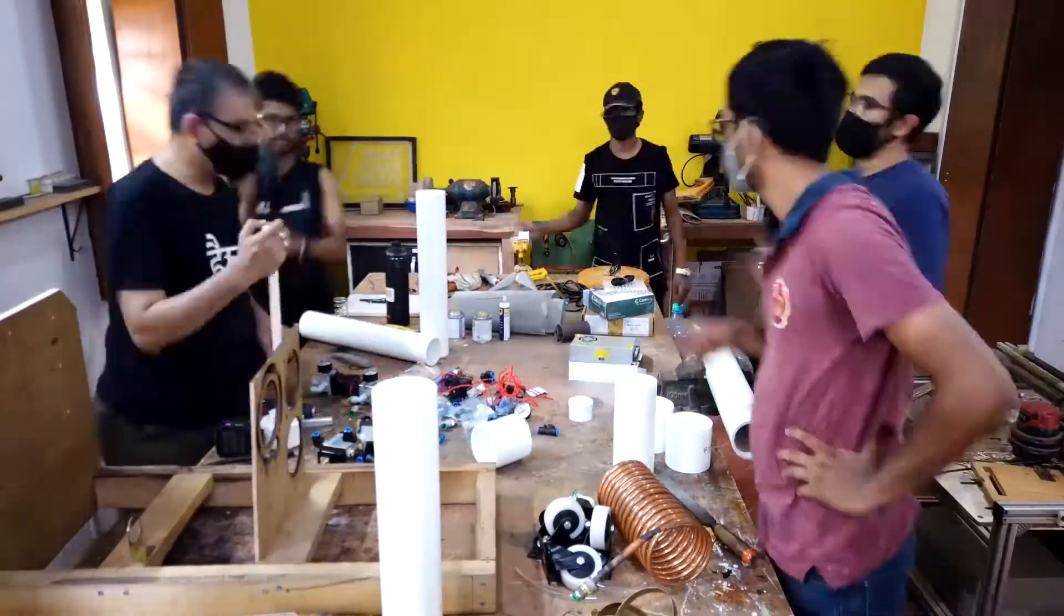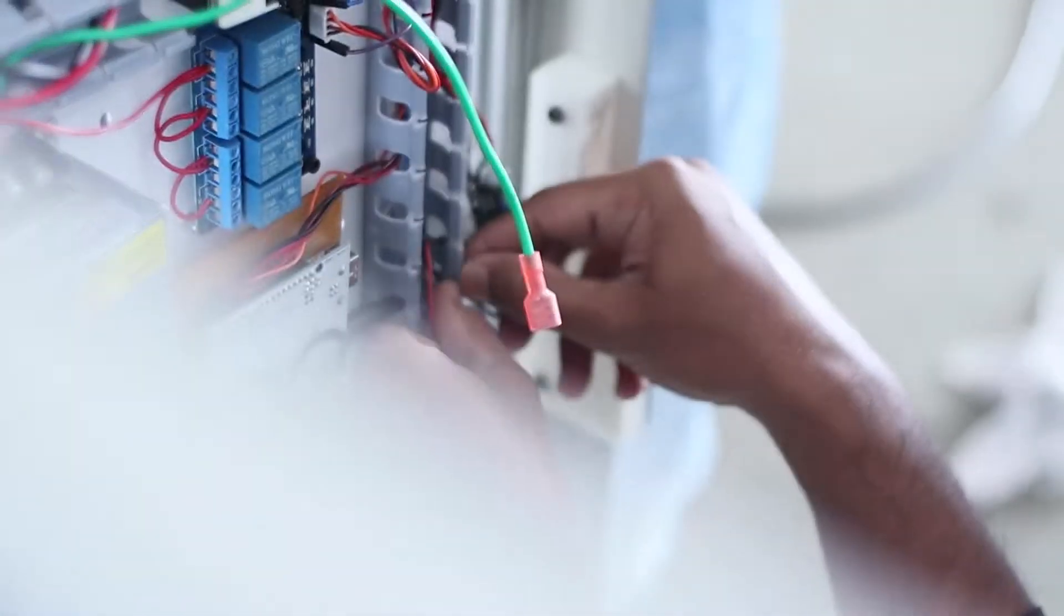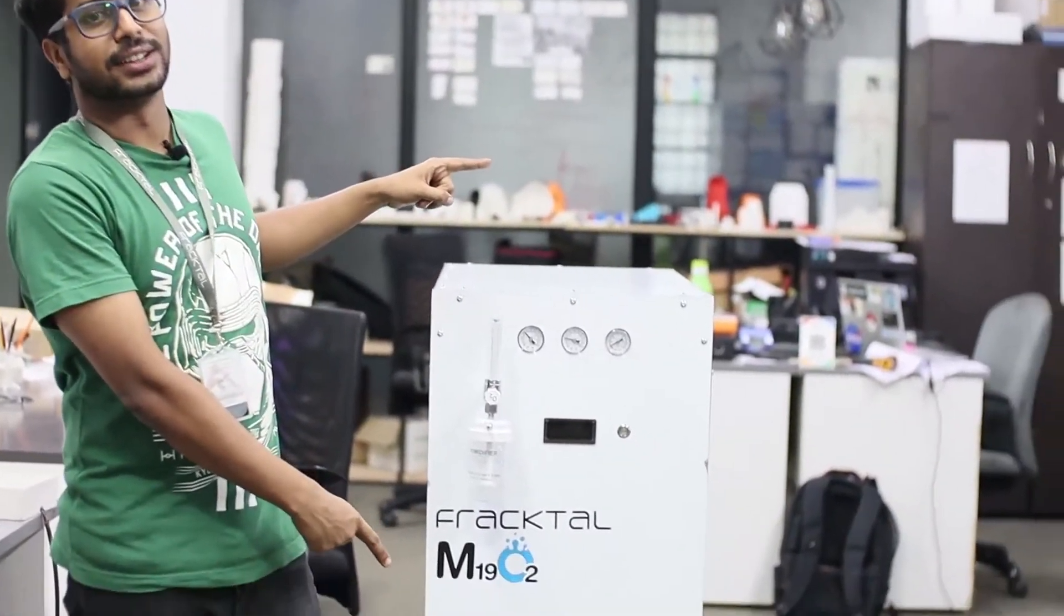After a month of researching and collaborating with makers and professionals from all around the world, we have finally built an oxygen concentrator.